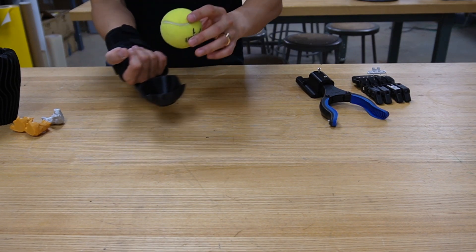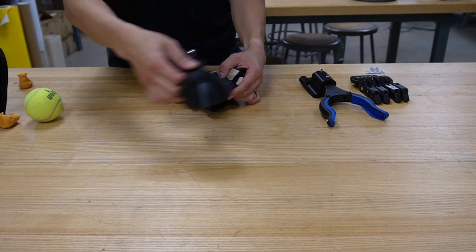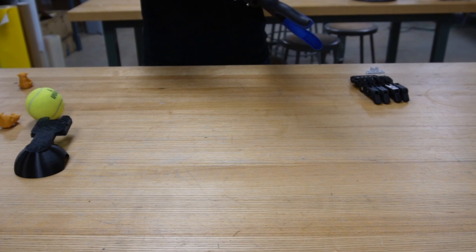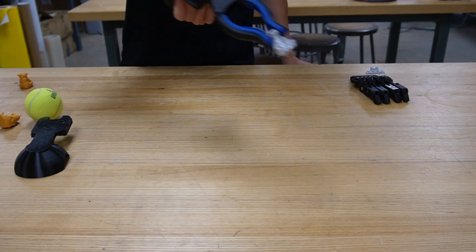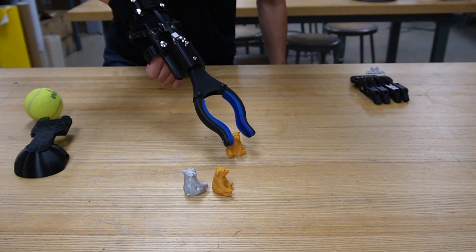Module examples include ball holders, grabbers, and mechanical finger modules. The next phase for the Exodia project focuses on enhancing adaptability and grip functionality. We aim to conduct user testing and advance toward research and commercialization.